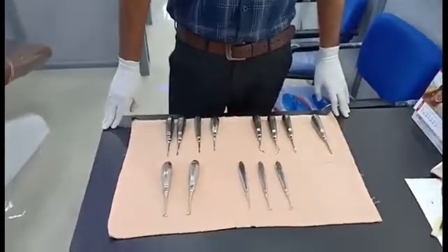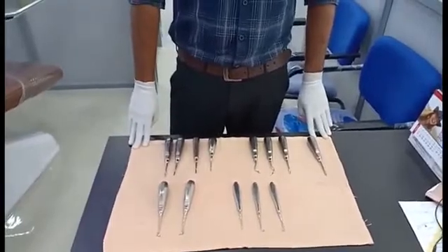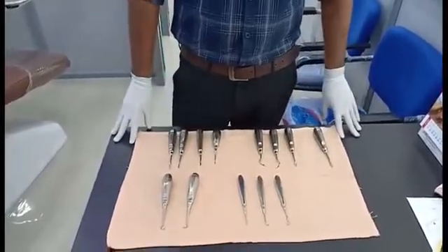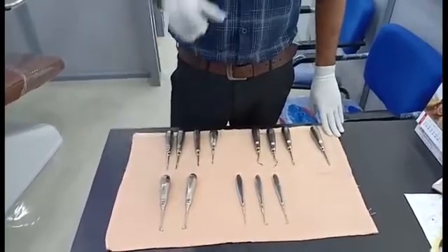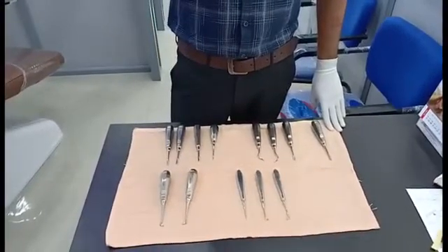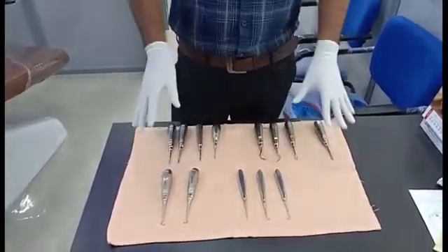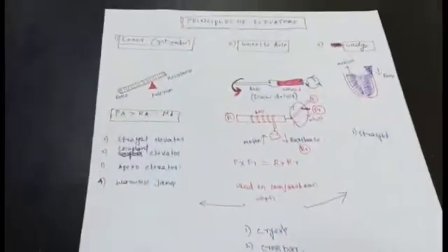Hello everyone, welcome back to a new session on dentistry. Today we have a demonstration video on dental elevators. These are used for extraction purposes. Most commonly, elevators are used when forceps can't encase the tooth properly, to retrieve a broken root tip, and also to luxate the tooth before application of forceps.